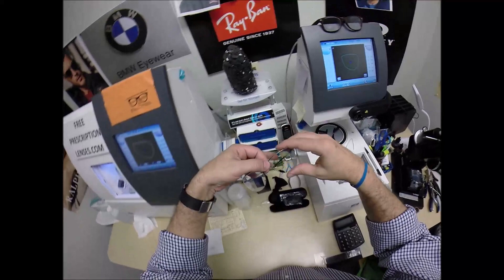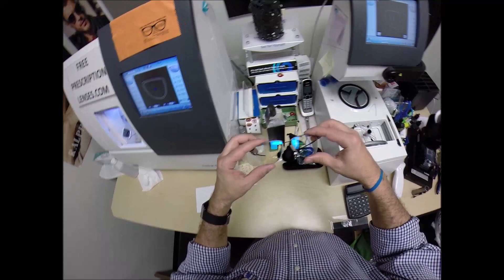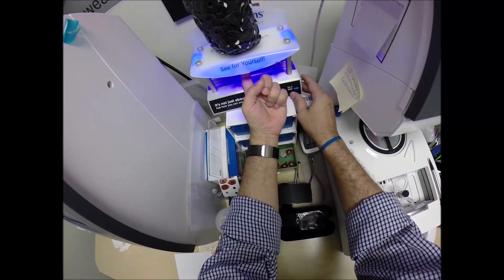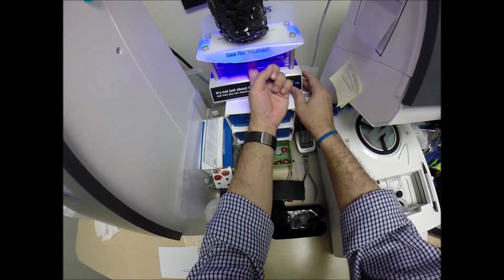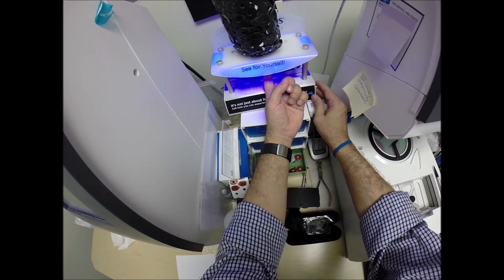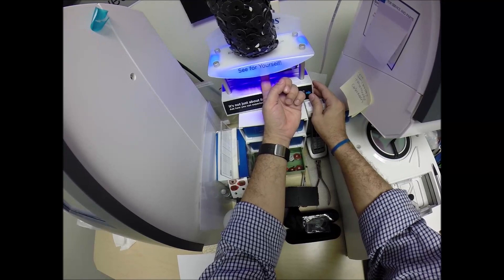But let me go ahead and show you what they look like. I'm going to expose them to a strong burst of ultraviolet light. Now, again, you have a little bit of a blue reflection indoors. Really, really cool blue style mirror. Again, it looks just like crystal sapphire on steroids. I'm going to activate them, meaning I'm exposing them to a strong burst of UV light. Now, as you can see, it takes about 30 to 45 seconds for transition lenses to darken. It takes a little bit longer when you come back inside, 45 seconds to a minute to a minute 15. Now, Mark and everyone else out there, pay attention, even though I repeat this in every video. All transition lenses will get dark on day one and continue to darken every day for the first two weeks that they're exposed to the sun. After that, they'll work for years of maximum performance.